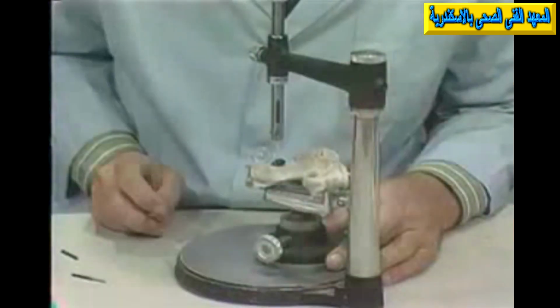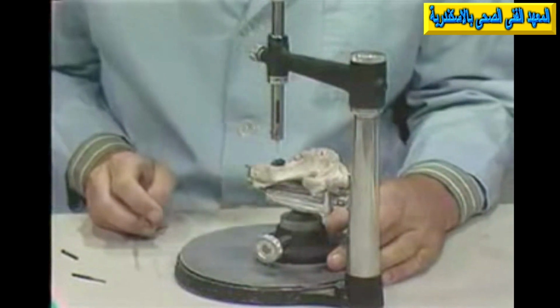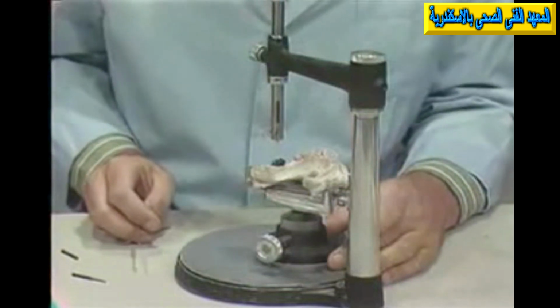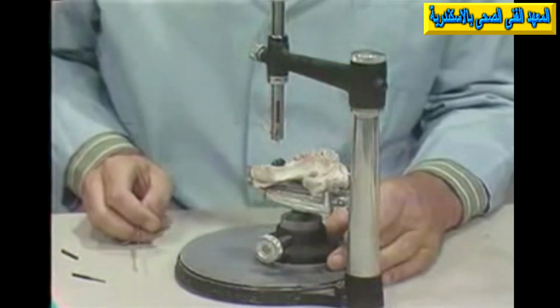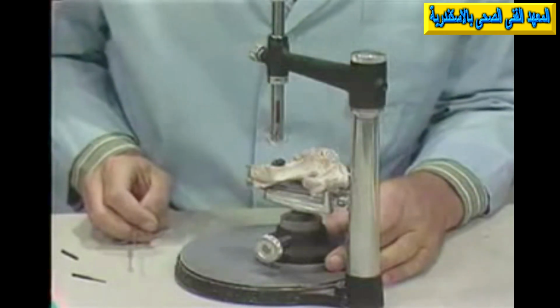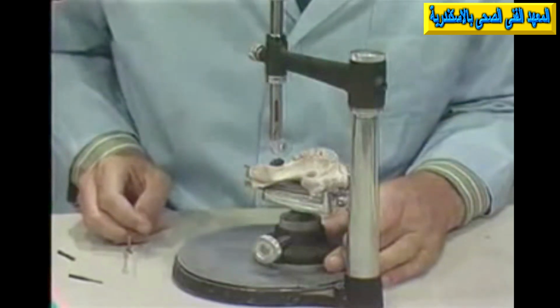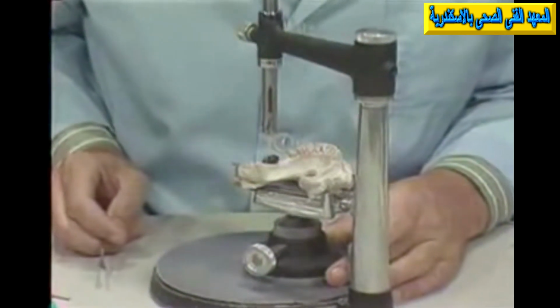The portion that you see remaining on the mandrel here, and I'll turn it around, has a kind of a little step-like internally, a little box-like insert. This portion here eventually will be cast as a portion of our partial denture if we intend to do this type of precision attachment or semi-precision attachment type of work. So this is one more use that we can put the surveyor to, and it demonstrates the fact that this has quite a value both in the diagnostic and evaluation procedures and also in the mouth preparation and construction procedures dealing with inserts, crowns, and rather specific types of restorations.